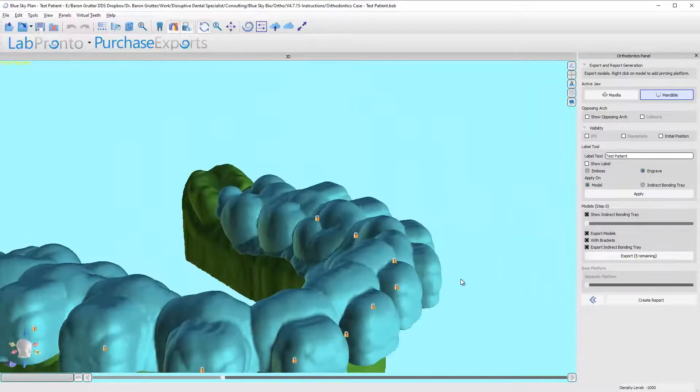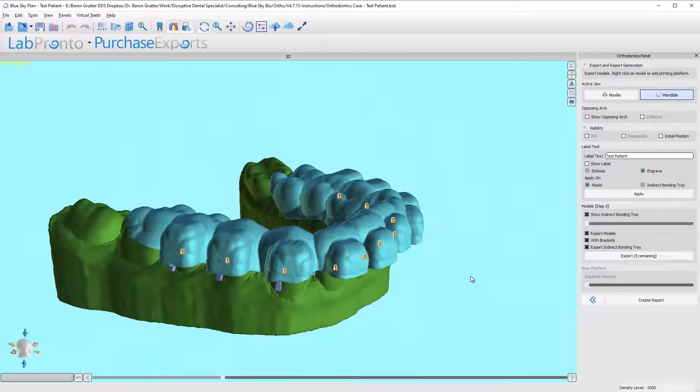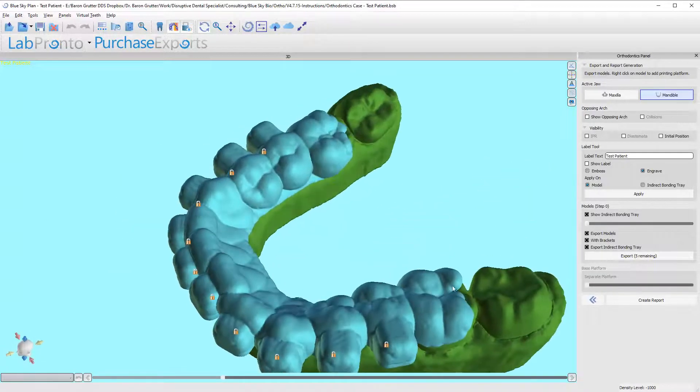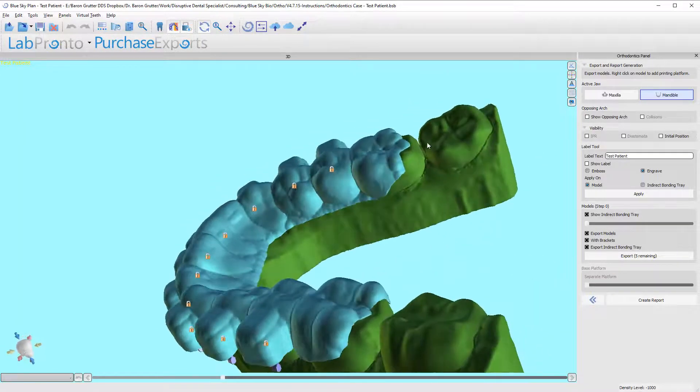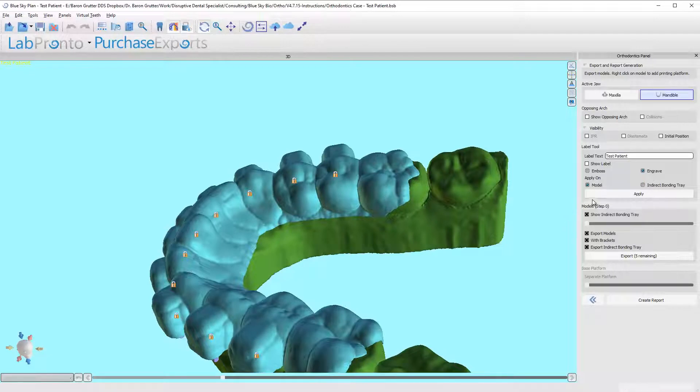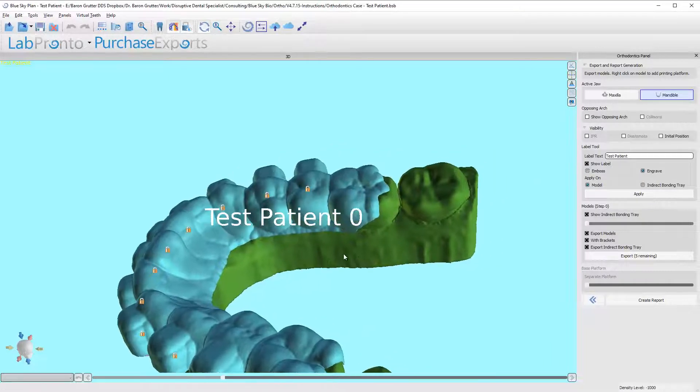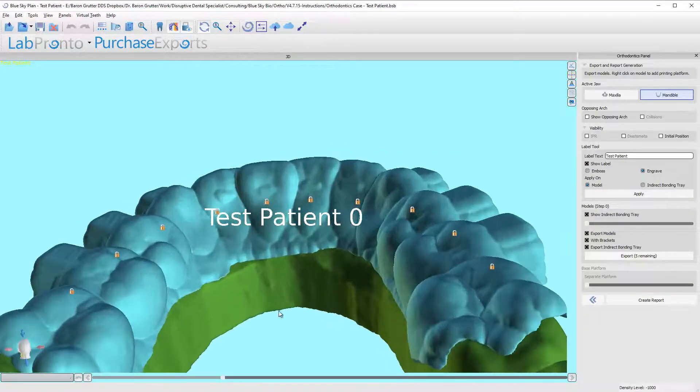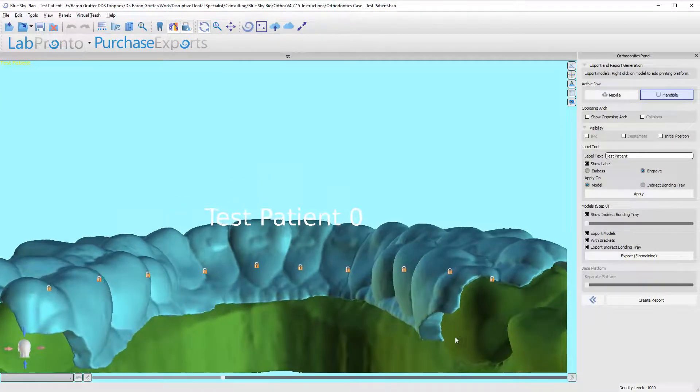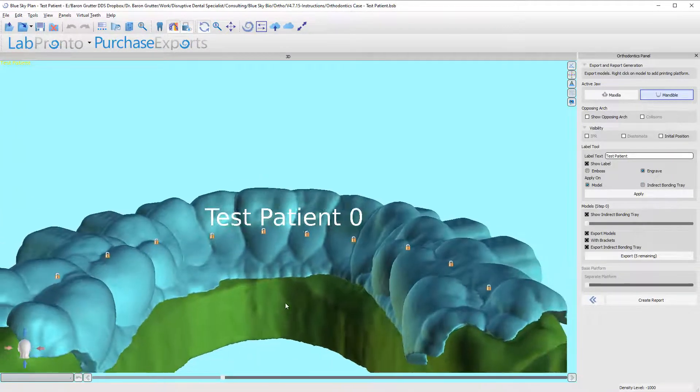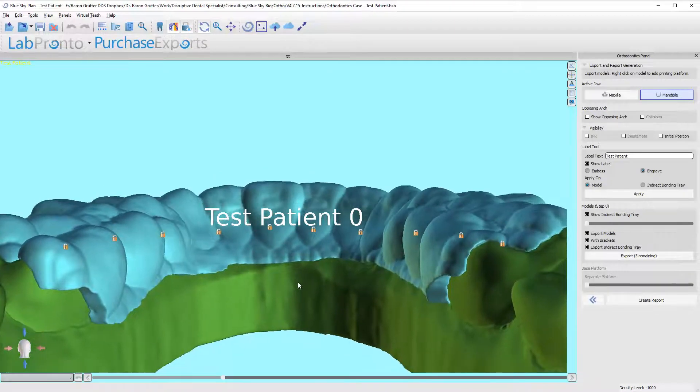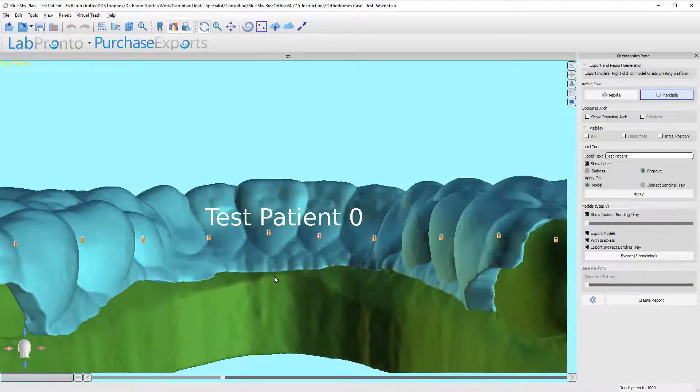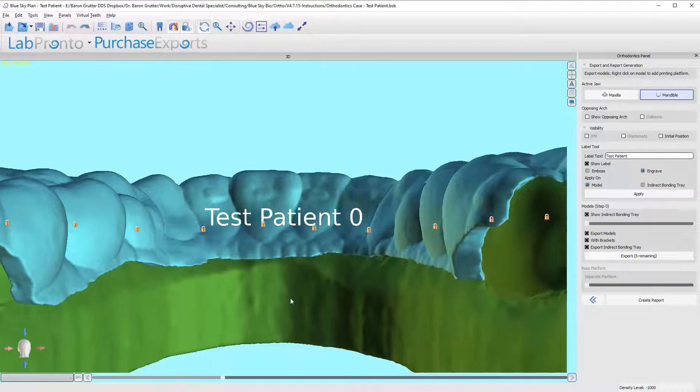Okay, so that's it for the actual tray. Now, I do still want to go ahead and show you adding a label to this. I'm gonna click on the test patient and I'm just going to show the label, and you can put this pretty much wherever you want. Keep in mind how you're going to be printing. I print this at a bit of an angle, so this should work well.